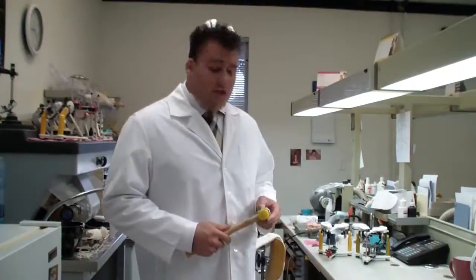What we're going to be doing today is testing the relative fracture resistance of some dentures using this hammer. Even though this is not a scientific test, it'll give us a good gauge and a good measure of where we stand.